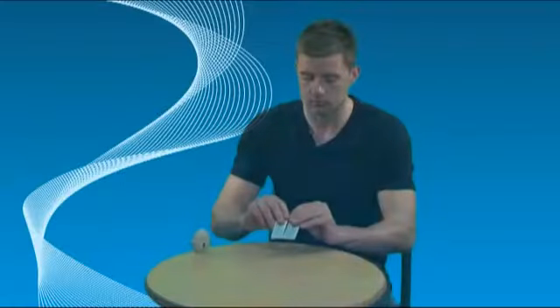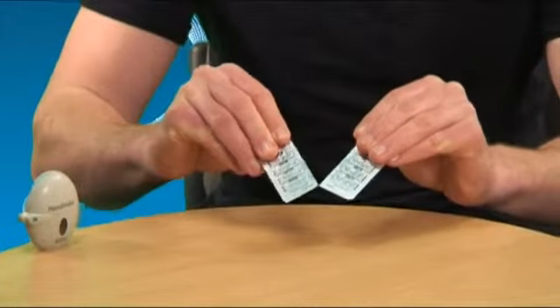How to use the Handihaler. To load the inhaler, separate one blister strip by tearing along the perforations.